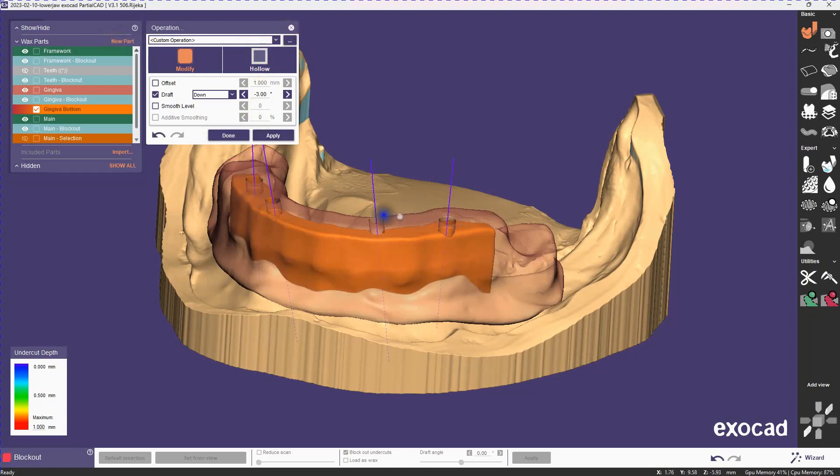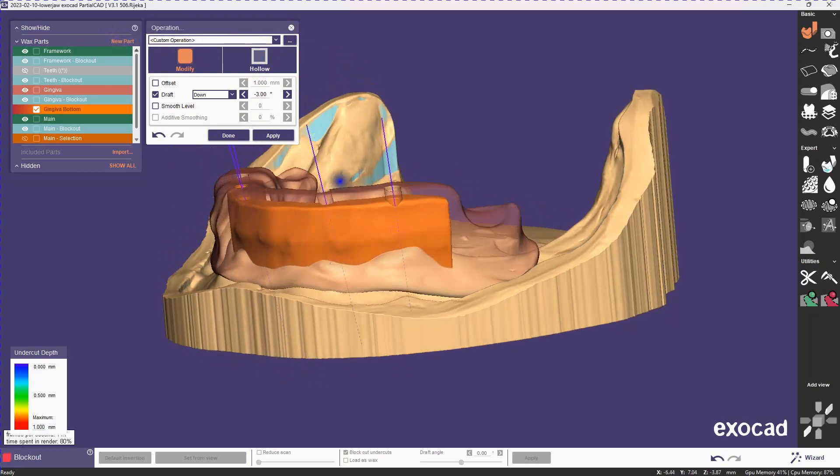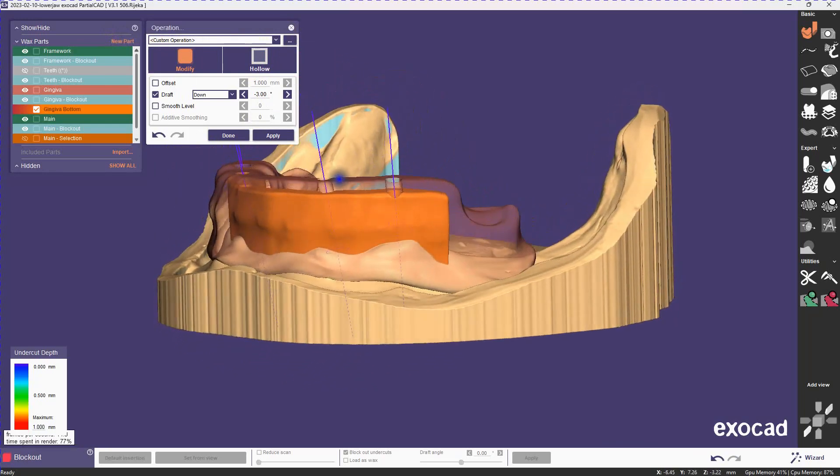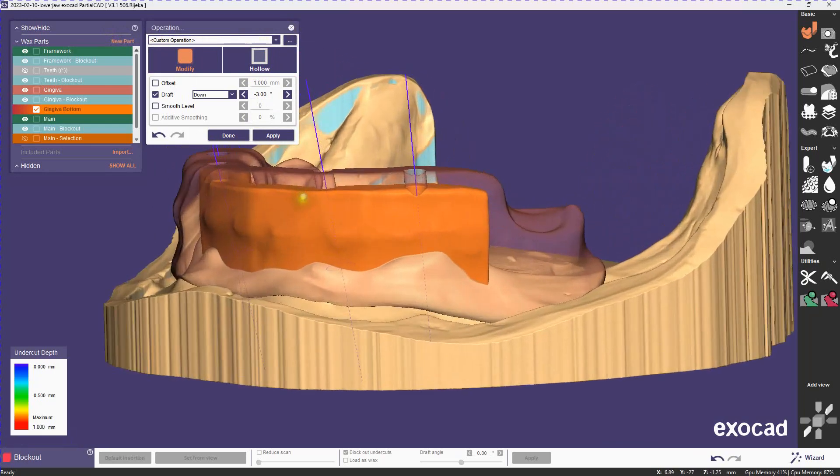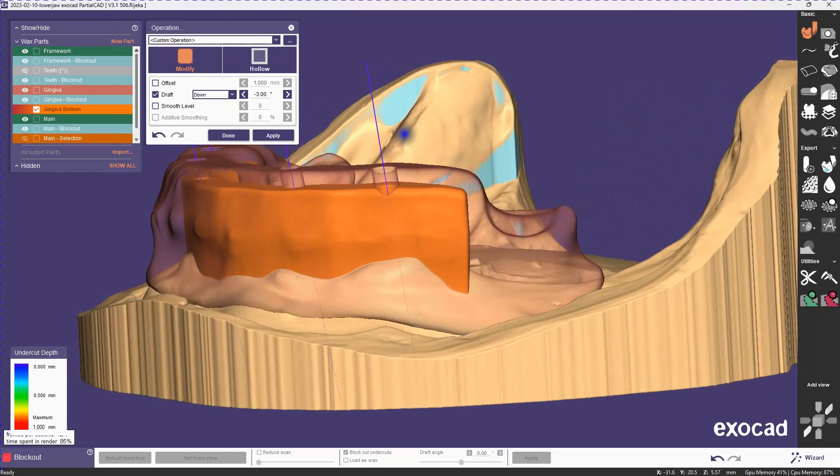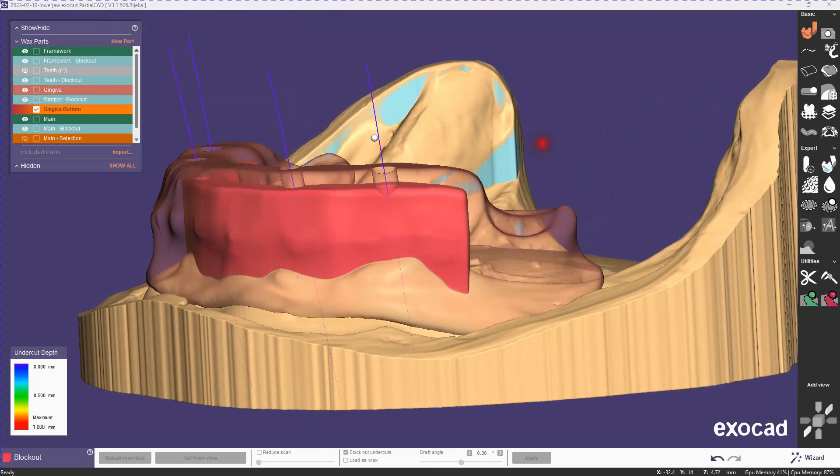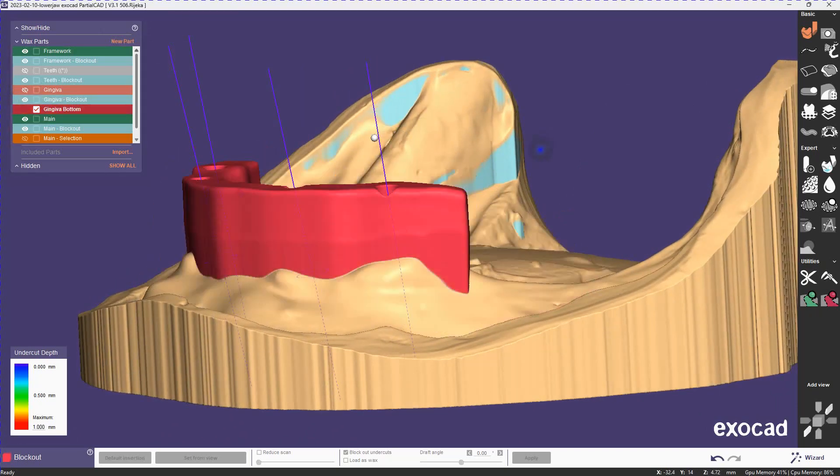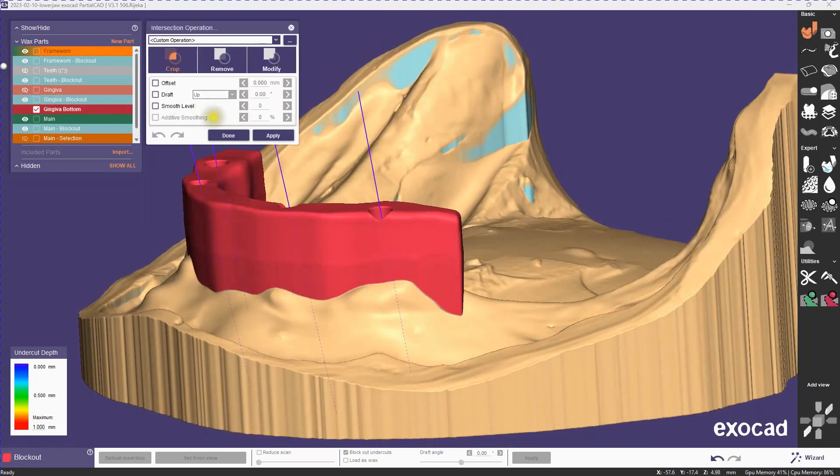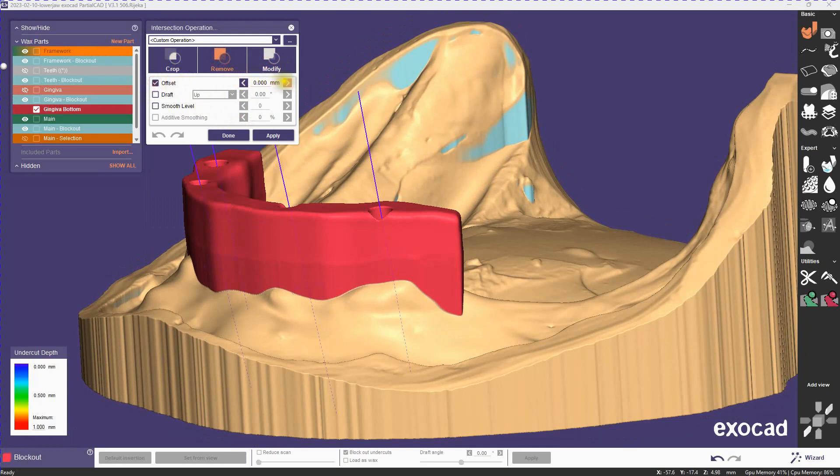So here you see the bar pulled down. Now we can just remove the bar from this, and we'll just have the drafted area left, which gets us a little bit closer to our bottom gingiva. I'm going to apply a slight offset just because the surfaces are so close to each other. They might create a little bit of noise, and you don't have to worry about the gap because we're going to take care of that in a second.